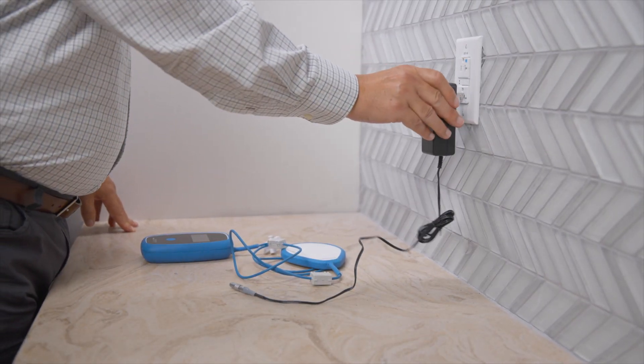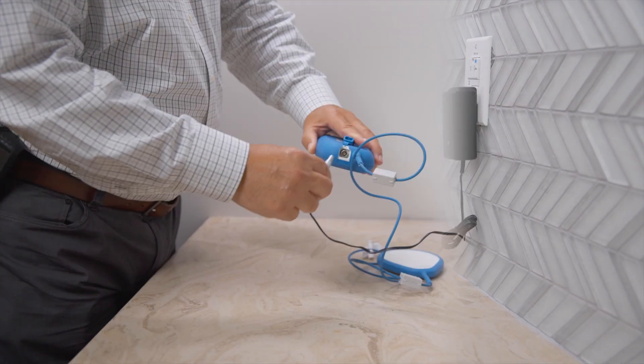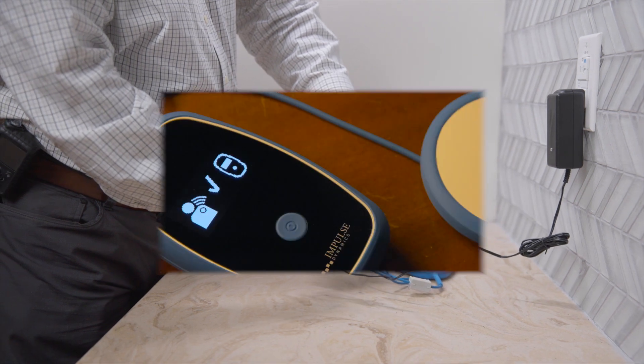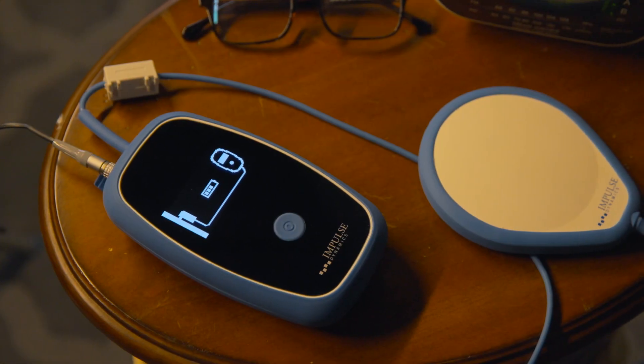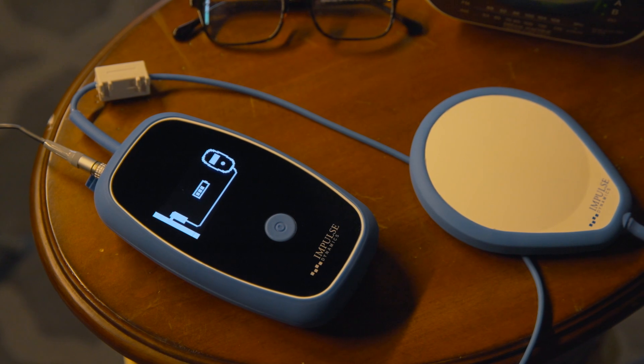When you are done charging your Optimizer, be sure to plug your charger back in. The charger should be kept on your bedside table to communicate with your Optimizer regularly.